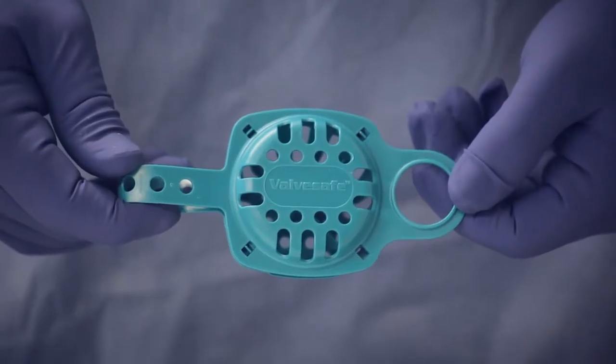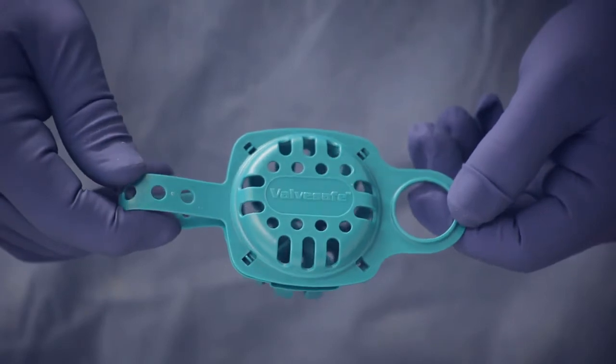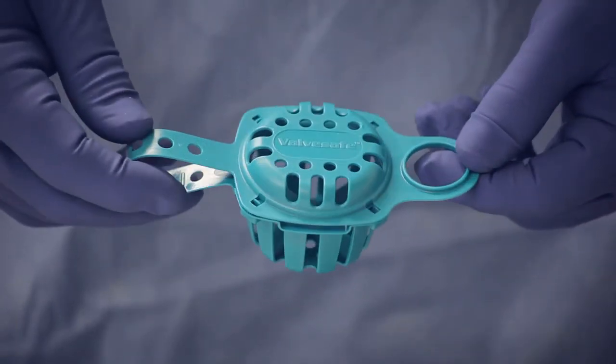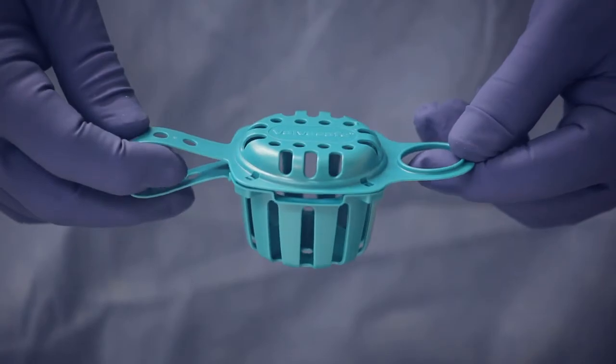Finally, the ValveSafe cage features large openings to allow cleaning solutions through, ensuring the valves are adequately decontaminated during the AER process.